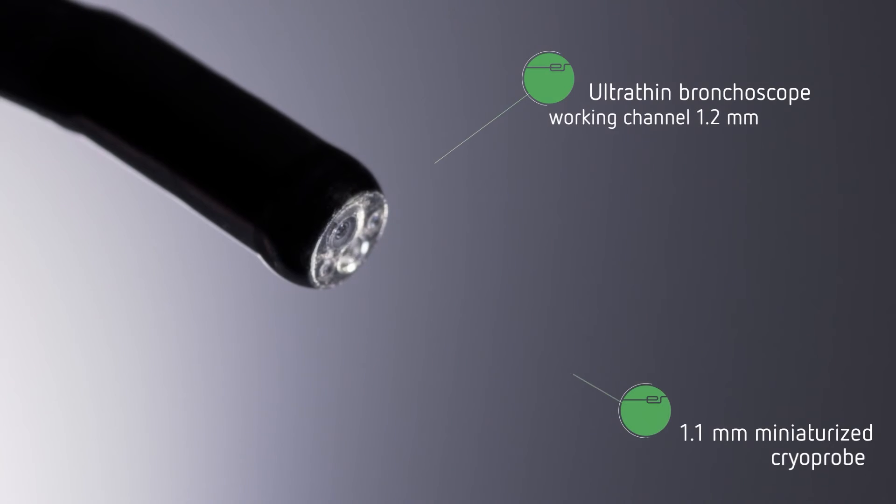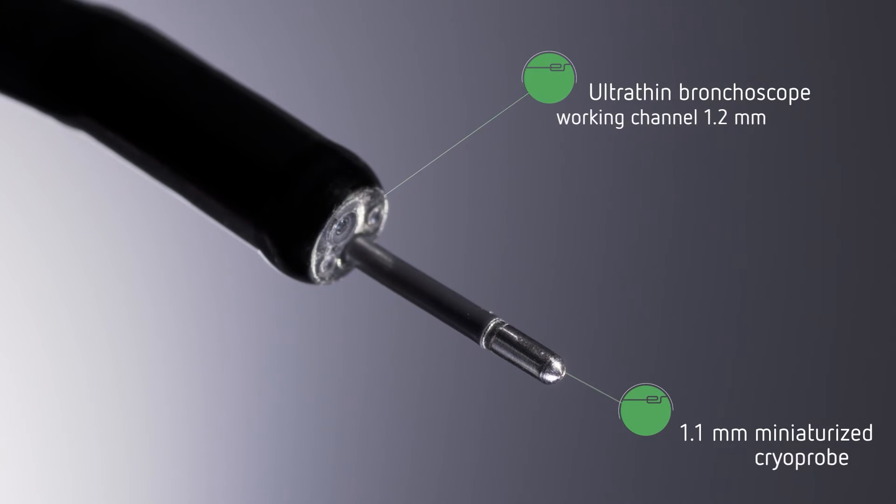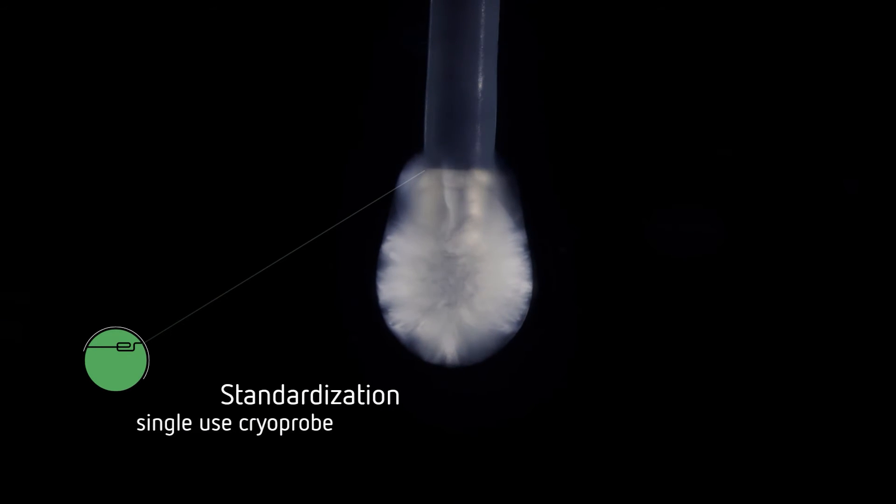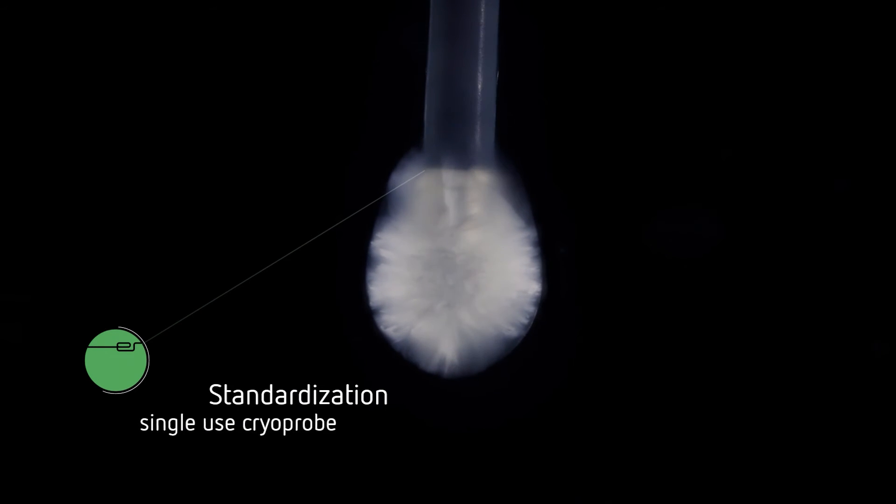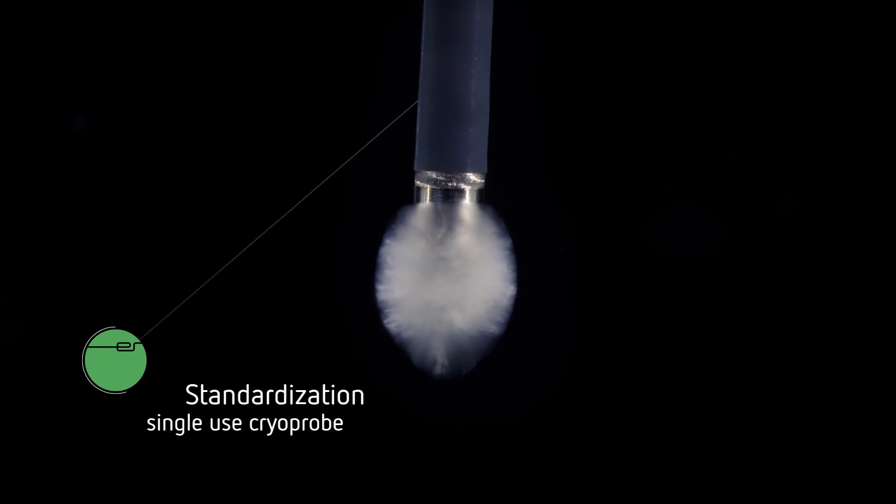The miniaturization of the probes expands the clinical utility and increases compatibility. The consistent technical performance of the new single-use cryoprobes generates reproducible tissue effects. This helps to standardize the clinical application.